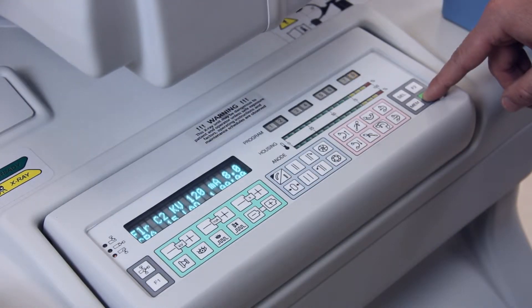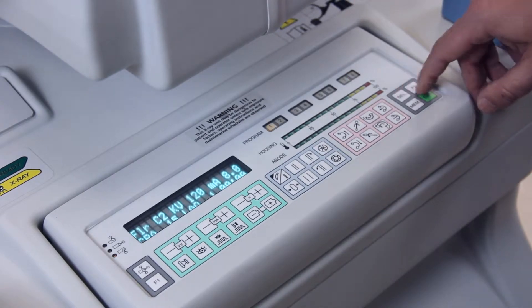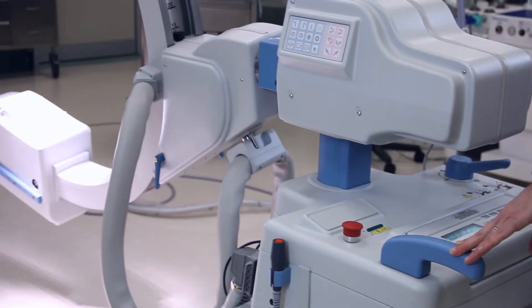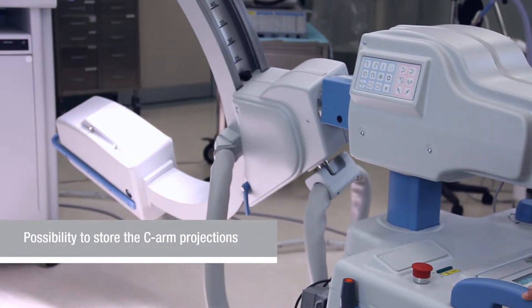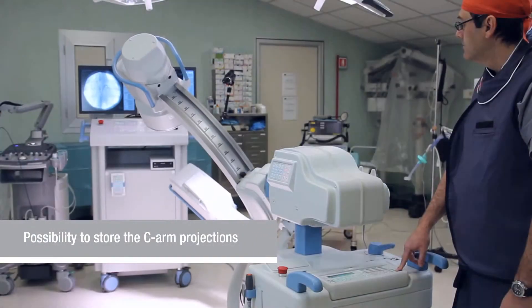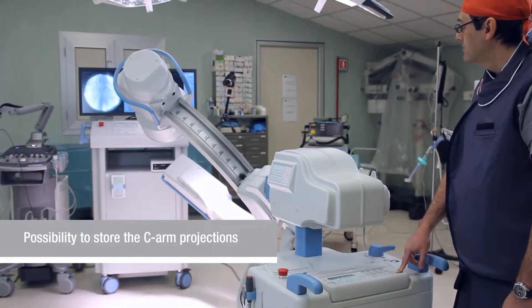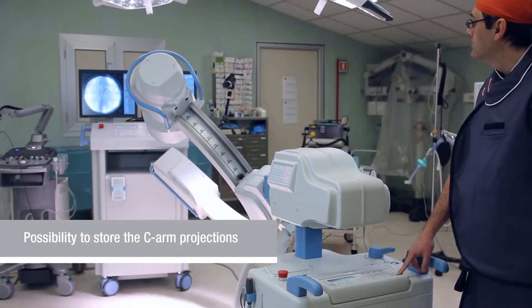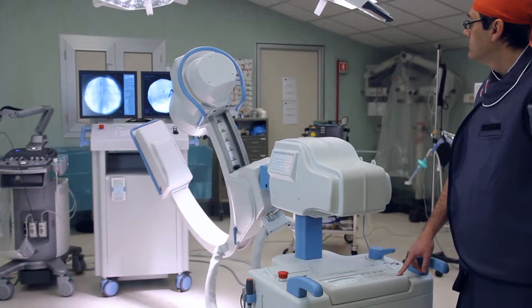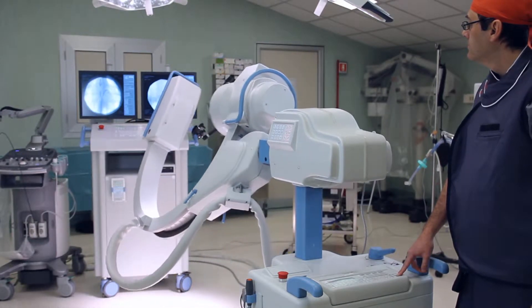Any C-arm position may easily be programmed. The unit has eight preset programs. A certain C-arm position is assigned to one button out of seven situated on the panel and may be reprogrammed at any time. One button is programmed to return the C-arm to its parking position.